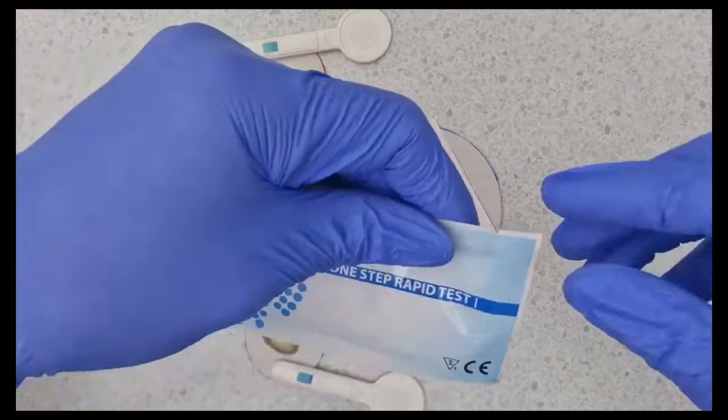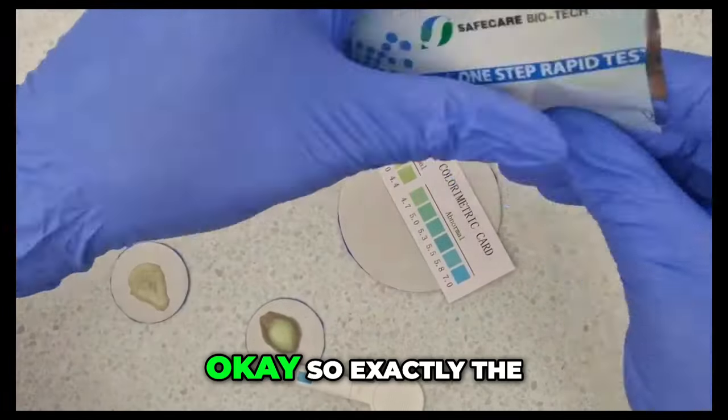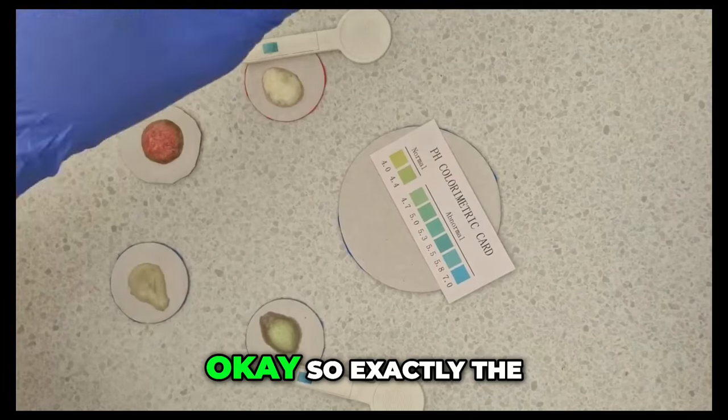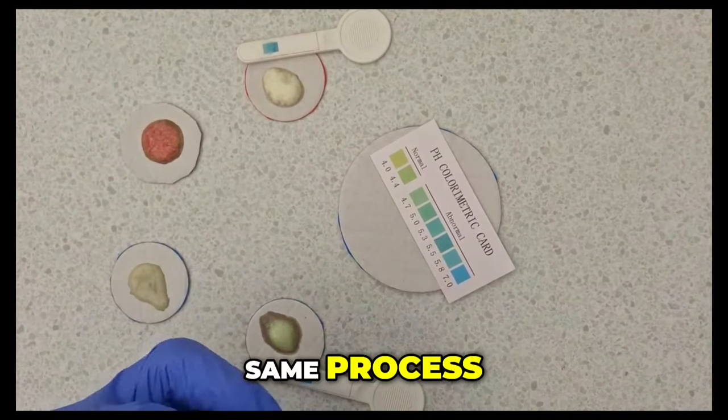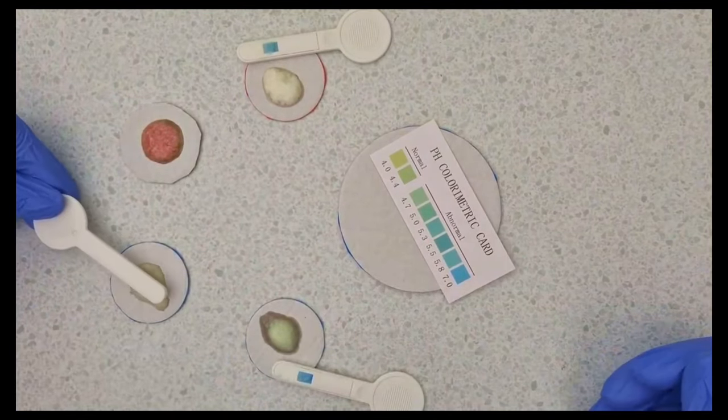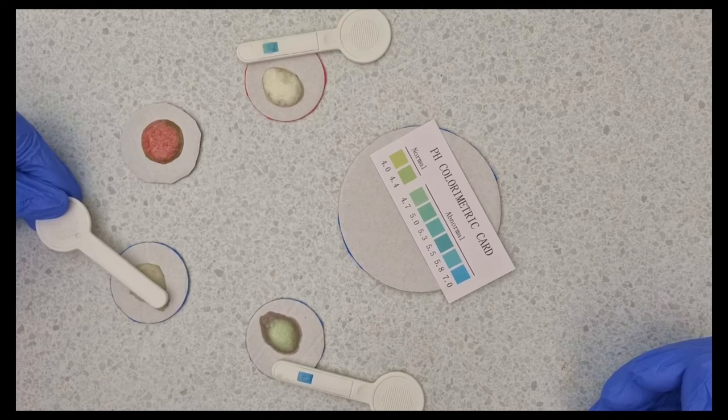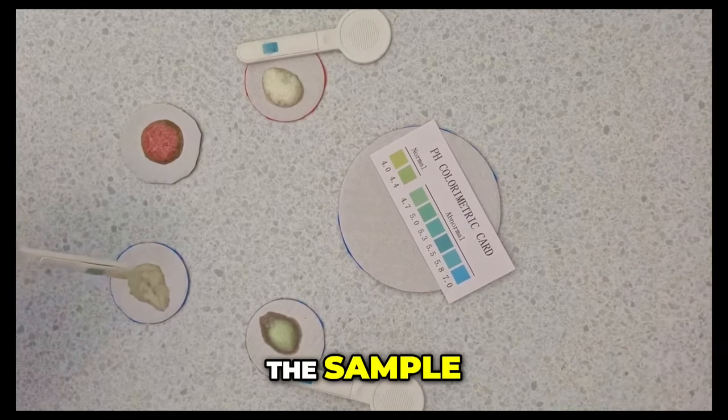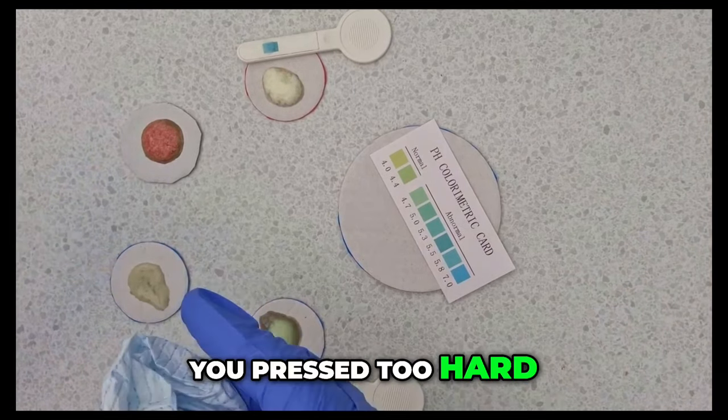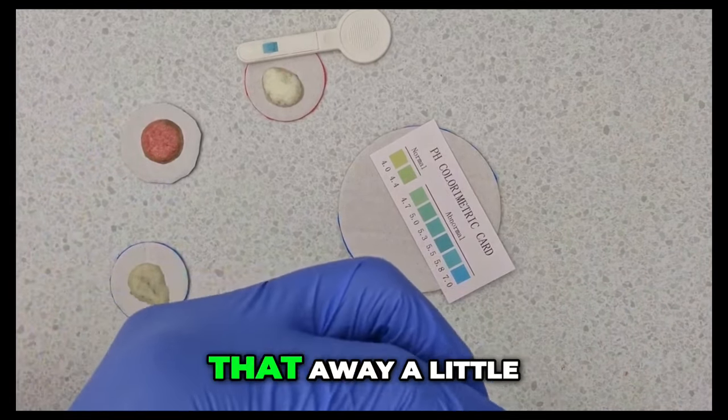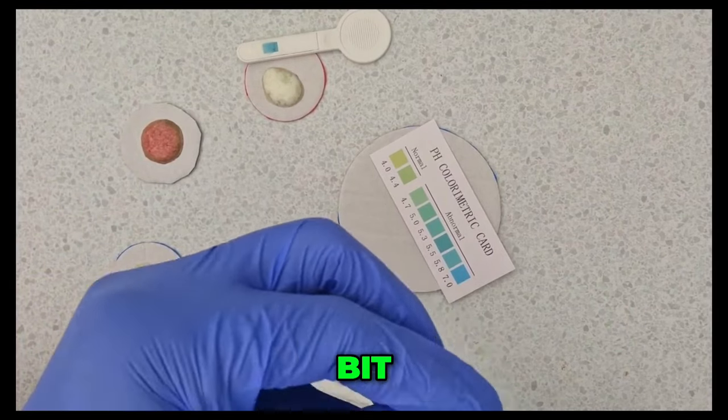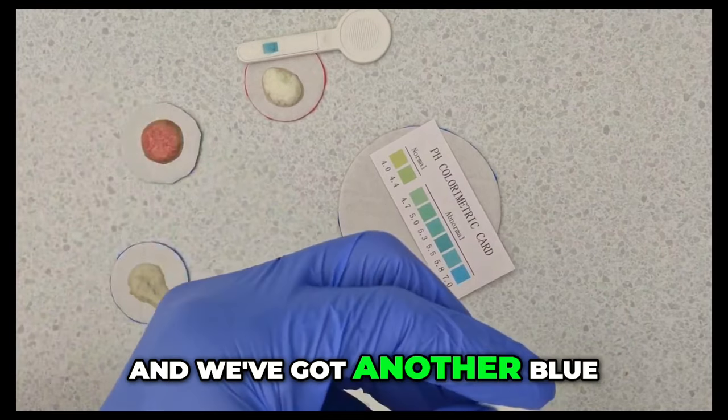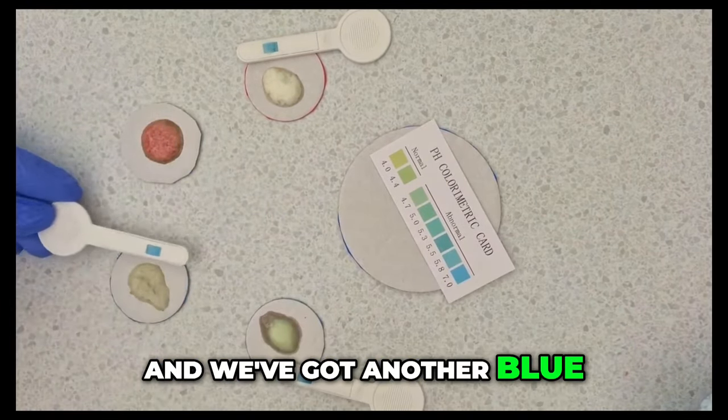So I think I don't want that one that goes green. This is the last. Okay it's exactly the same process. Taking too much of the sample. You pressed too hard. Okay let's just mop that away a little bit. And we've got another blue. Another blue.